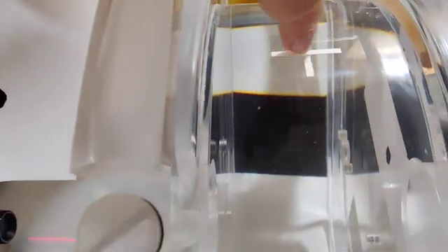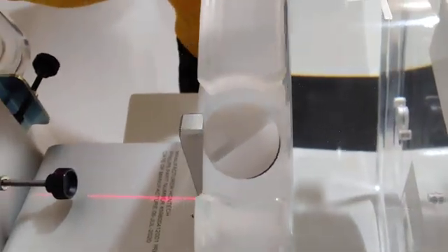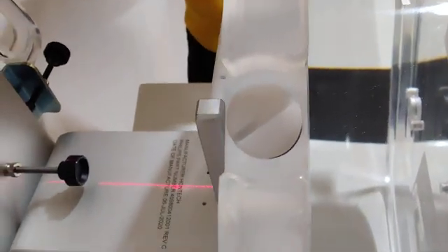All right, it's really set up so that it's basically about here. So I'm going to show you what we're going to do next. If you get like we got yesterday, because the lasers were a little bit off and I centered it to here, it told me I had to actually move these pencils.